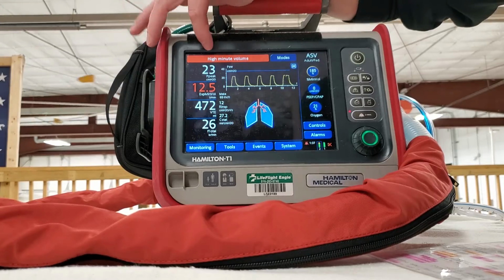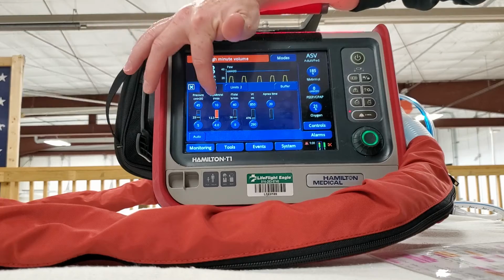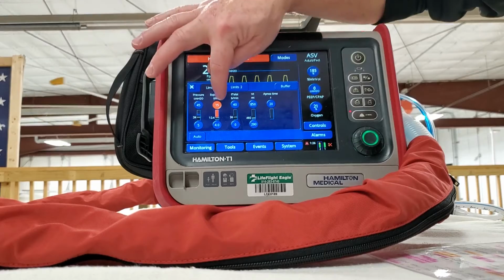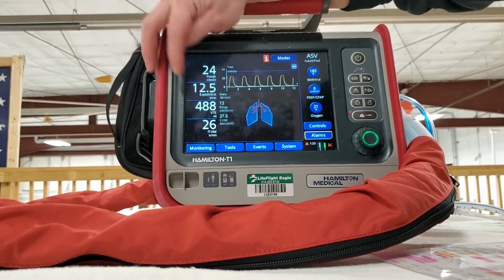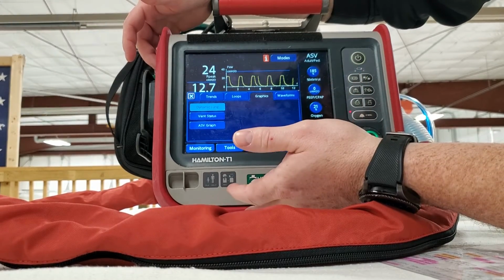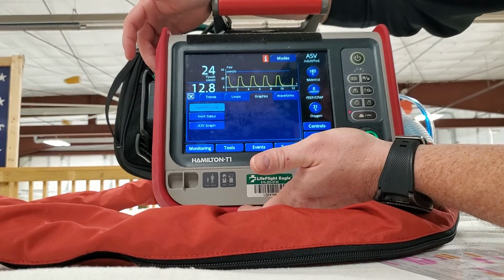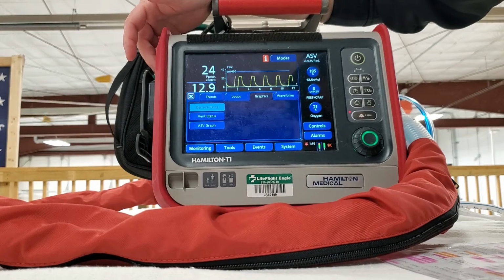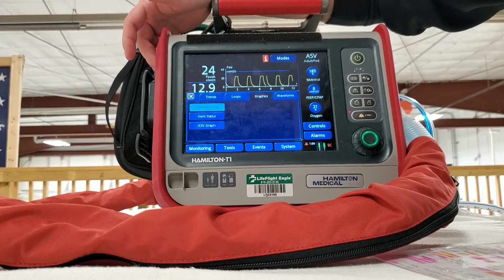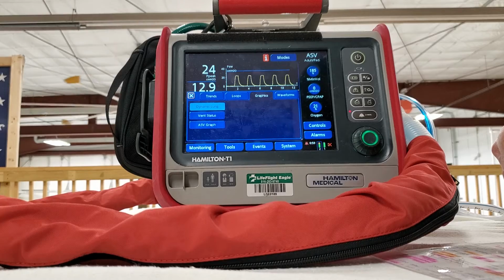And as you've seen, you can also click on this if you want. But yeah, this is a great vent. It's going to provide us some different tools that we have. I don't know that it's any better or any worse. It's really dependent on the person using it. I still have some trouble every once in a while with ASV just because I don't totally get all the fine nuances, so I'm learning about it every day. But it's going to be a great tool.